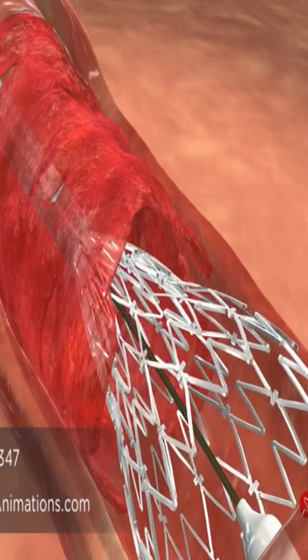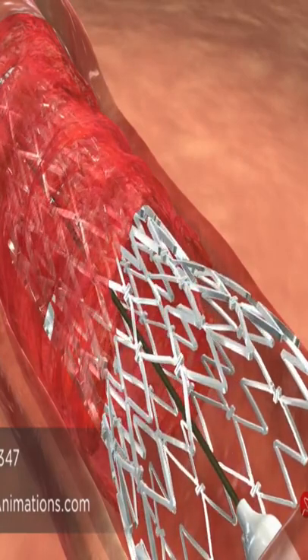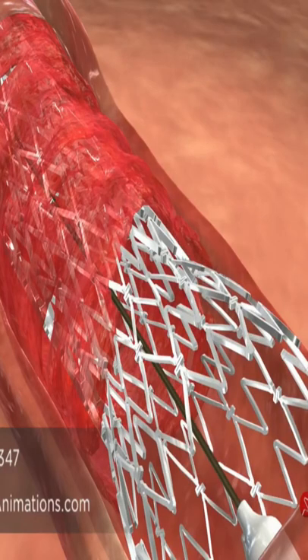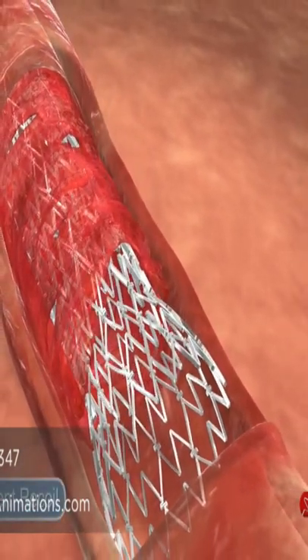And easily deployed over the thrombotic lesion by retracting a protective sheath, and because of its inherent design and properties, it exhibits no recoil.